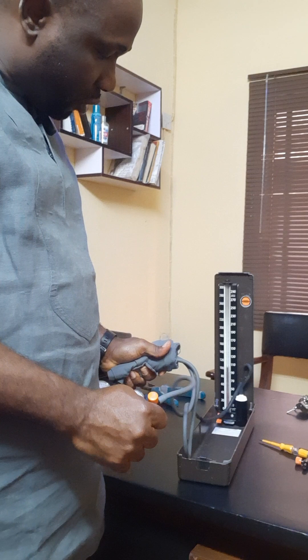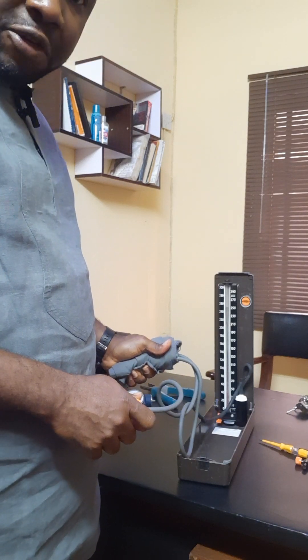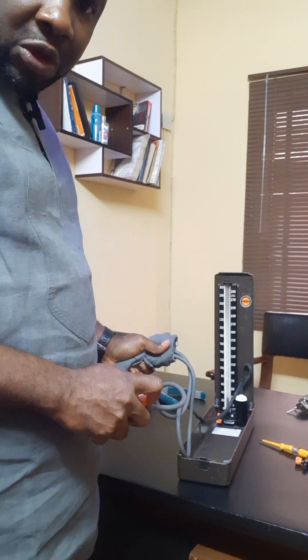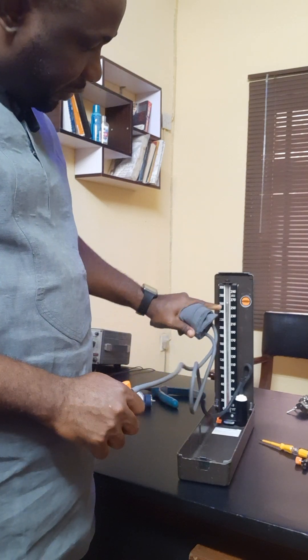Let me now pump for us to observe. You can see the seamless movement of the mercury. The mercury is now going up and down. Watch and see — see the mercury.